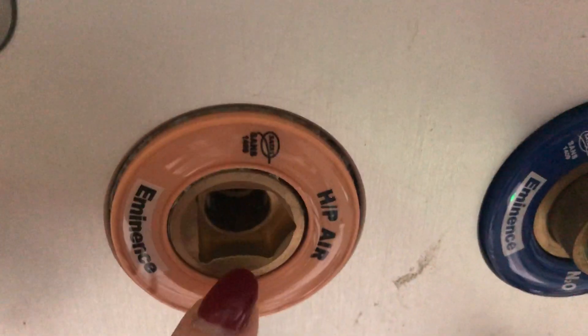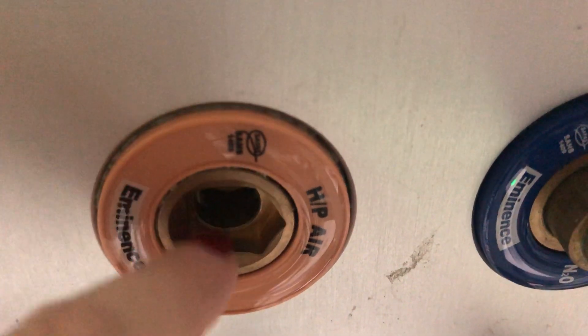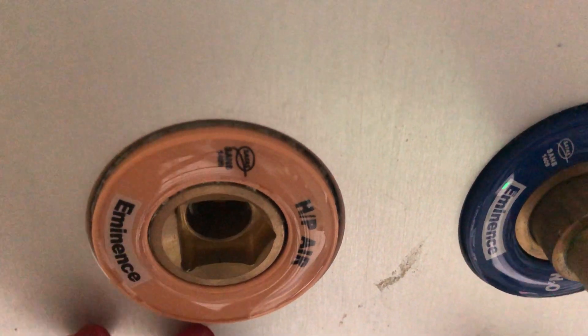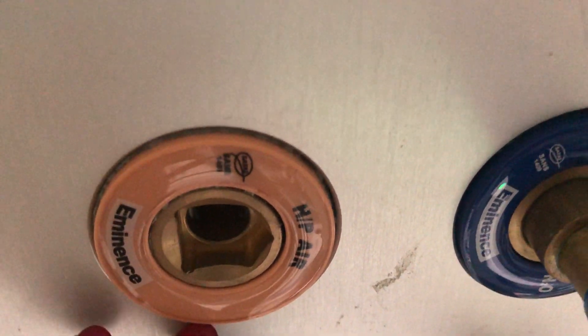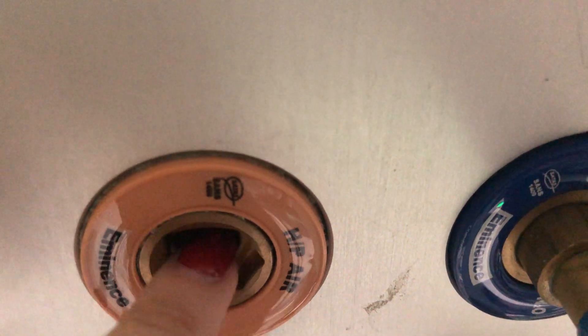There's one more connection marked HPA, which stands for high pressure air — used for orthopedic drills. Don't worry too much about the shape of that one. Following the exhaust pipe, you can see it connects all the way here — that's basically the exhaust pipe of the machine.